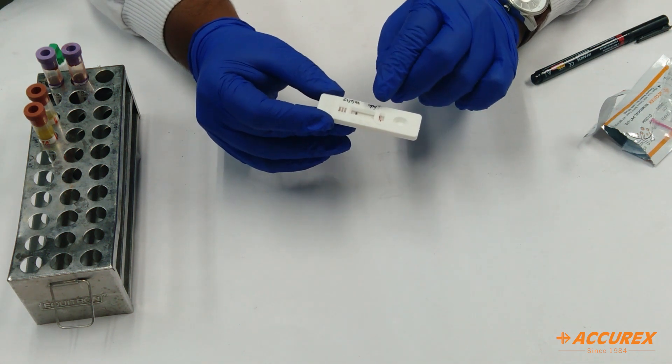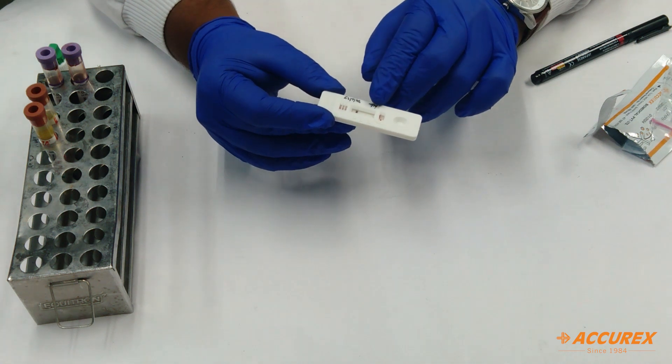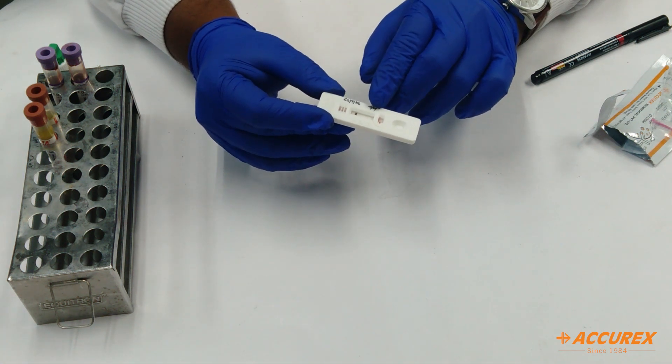If any positive is there, then you can see the band appear according to the test results.